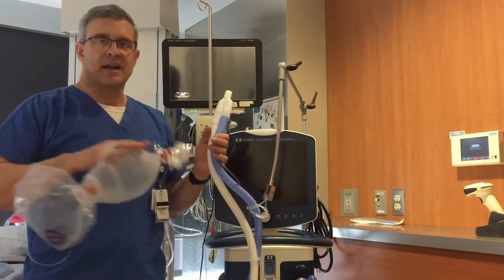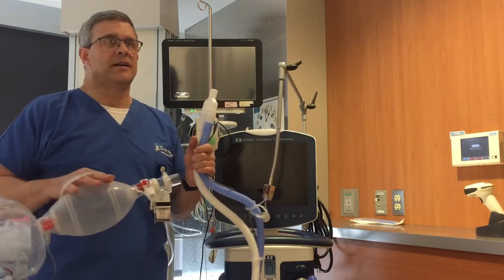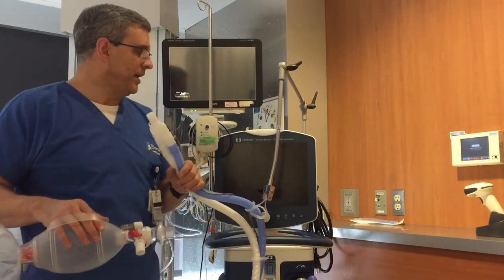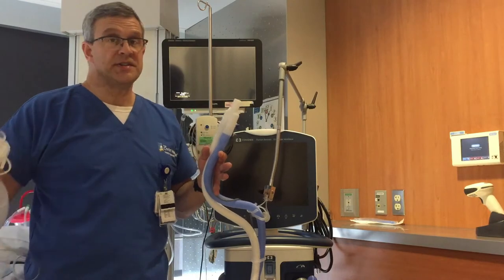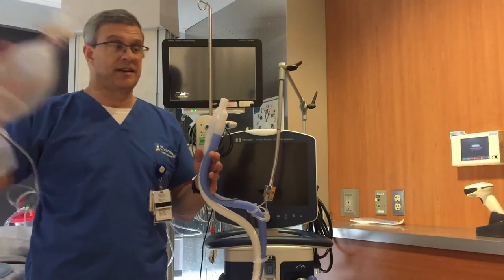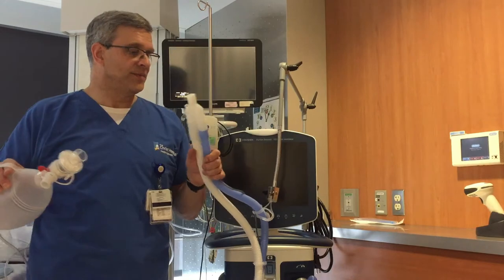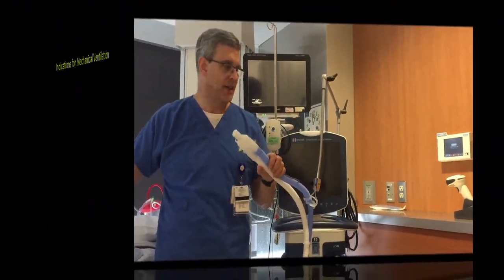The ventilator does lots of really cool, fancy things, but really it pushes air in and lets air out — and the bag does the same thing. They both provide that basic function.